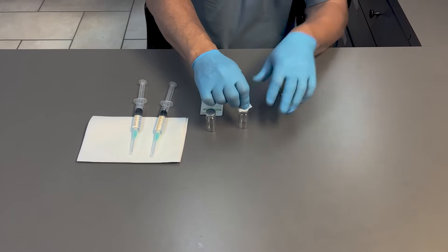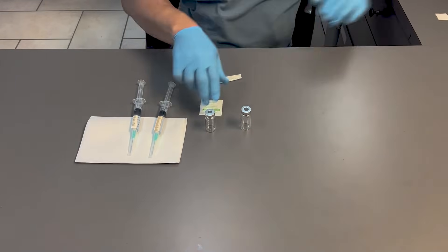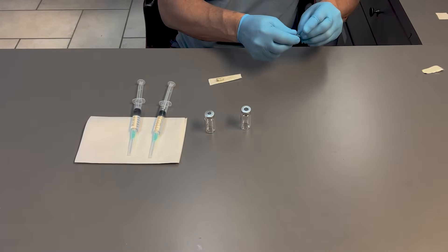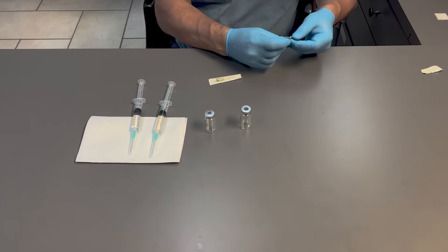First thing we would do is sanitize the rubber stopper on the vial before it's filled.